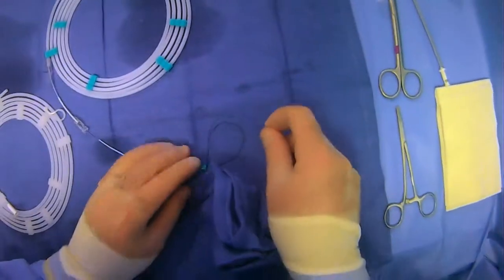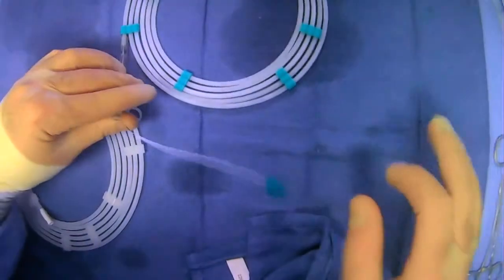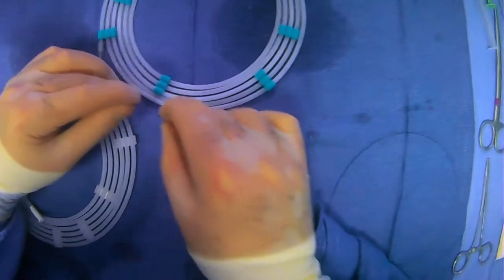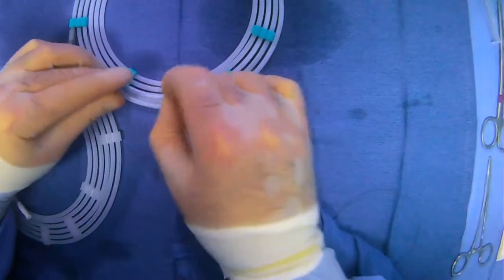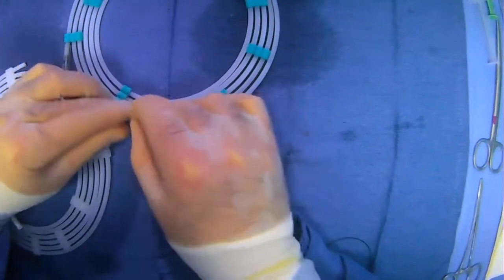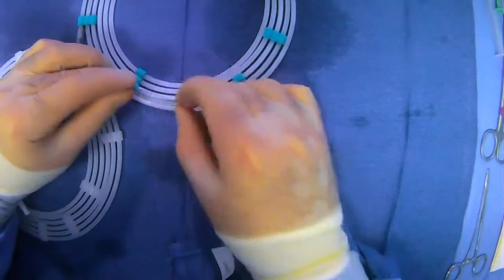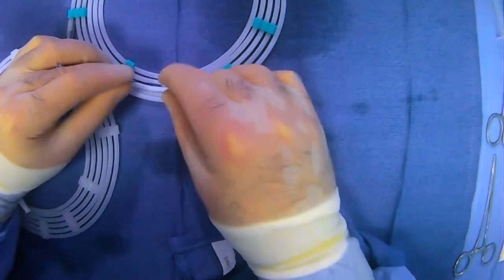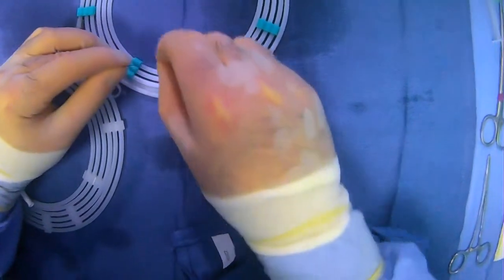Now we can look and see what's going on here. And we'll keep loading this into place. It's easier to do this when things are still in their sheath here.